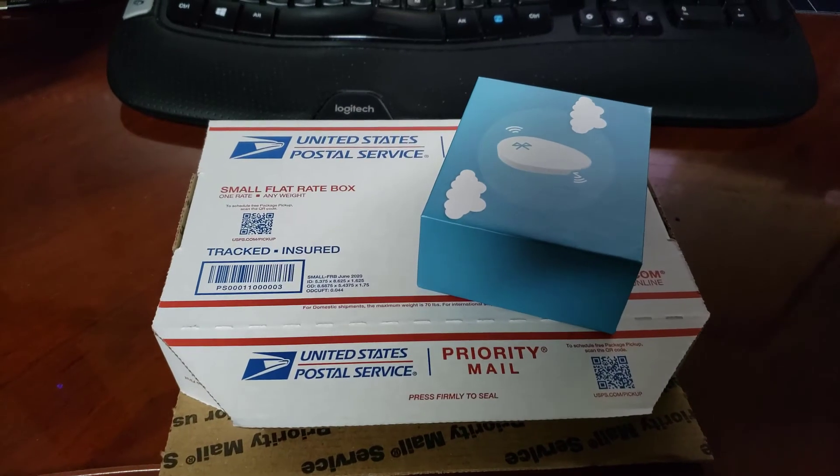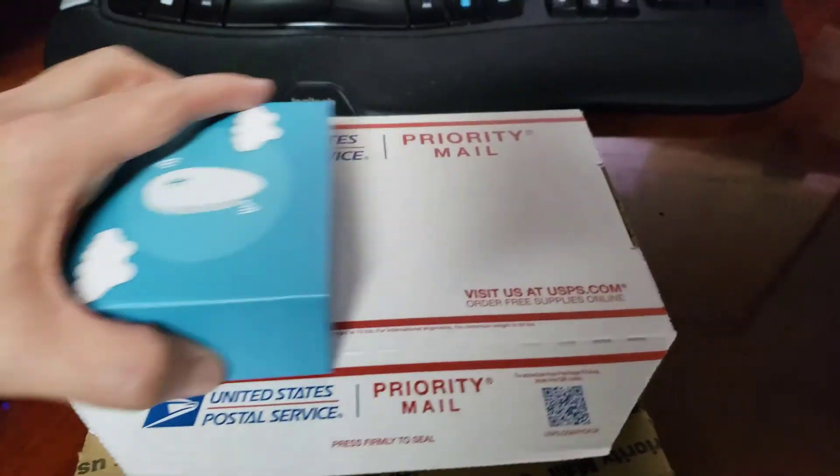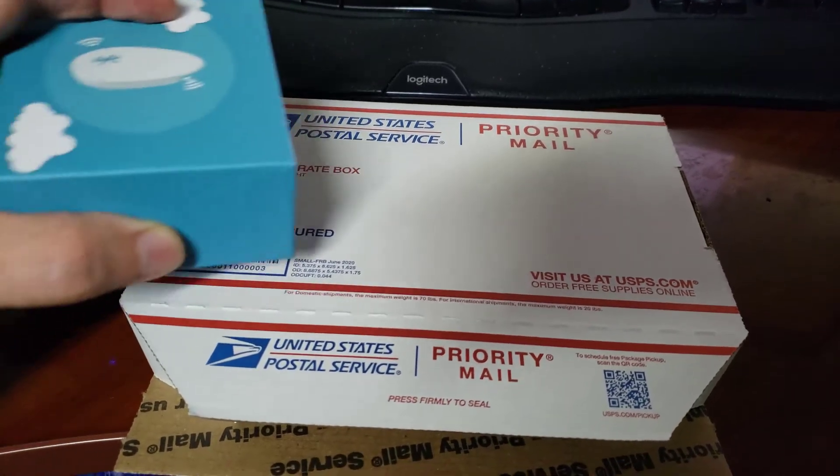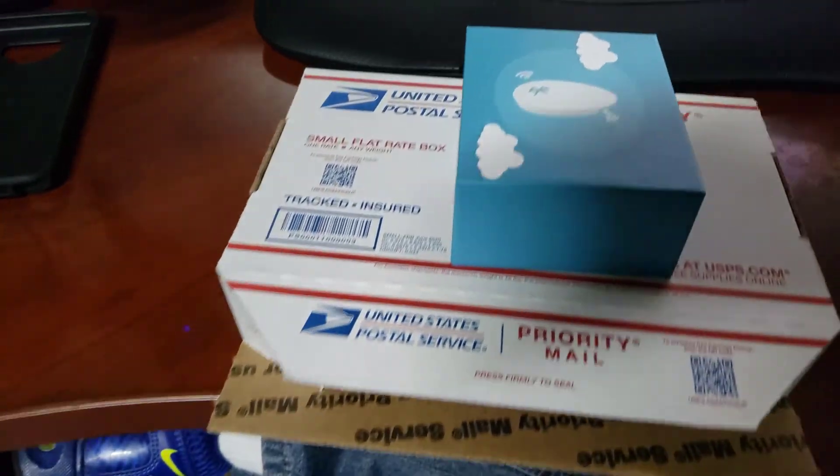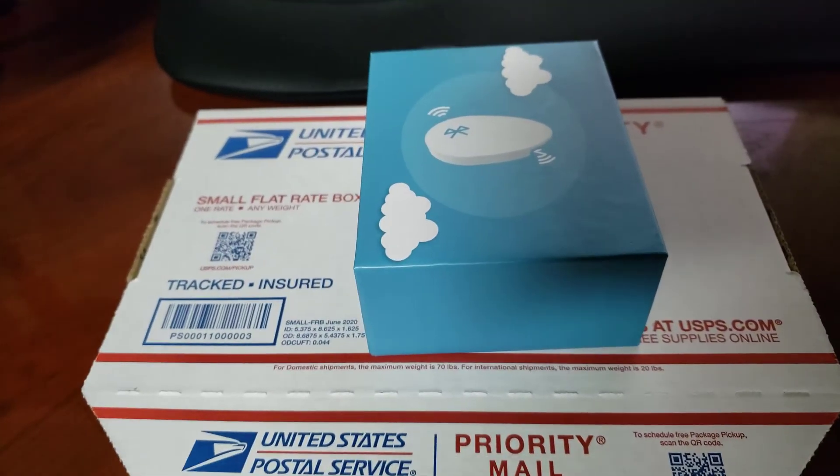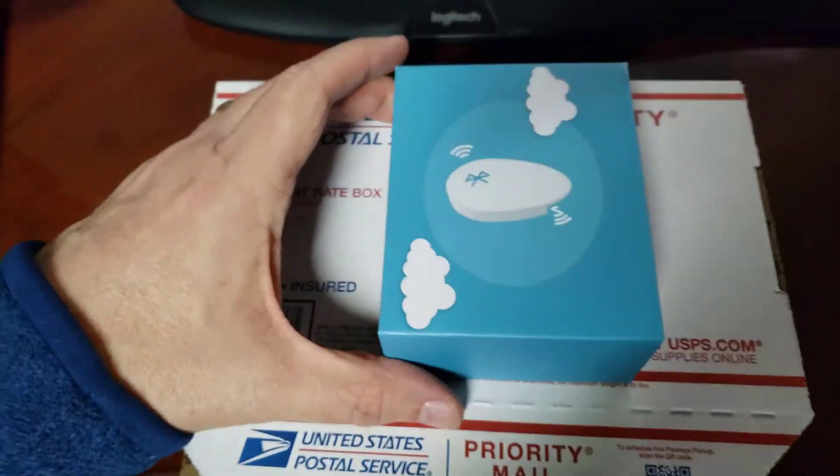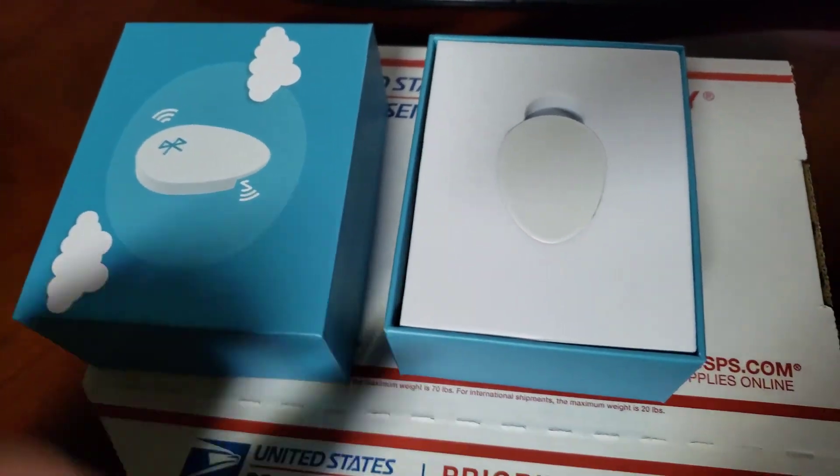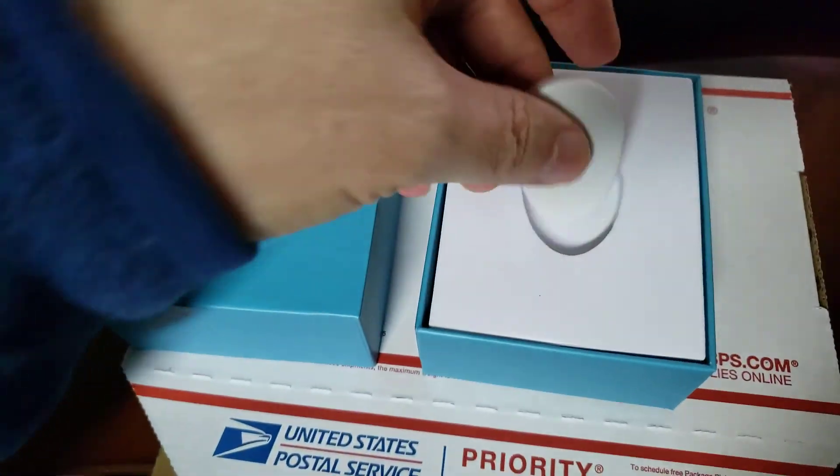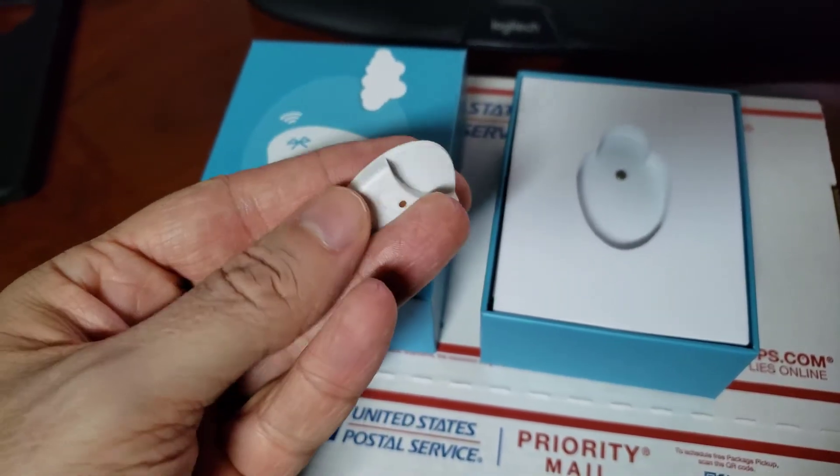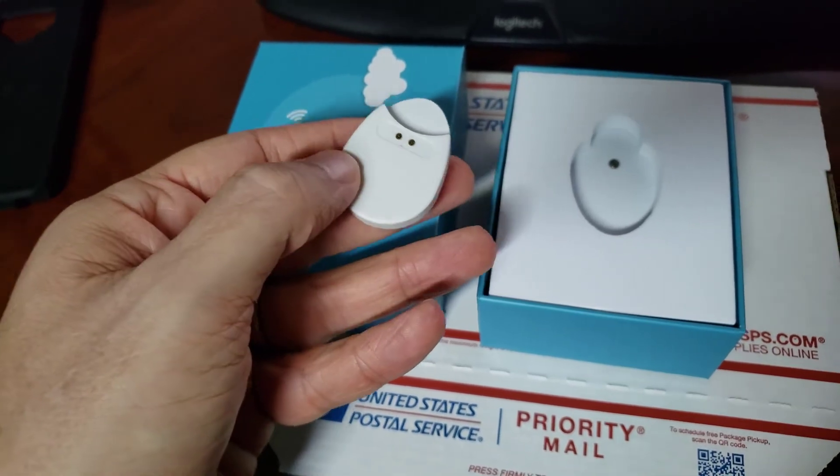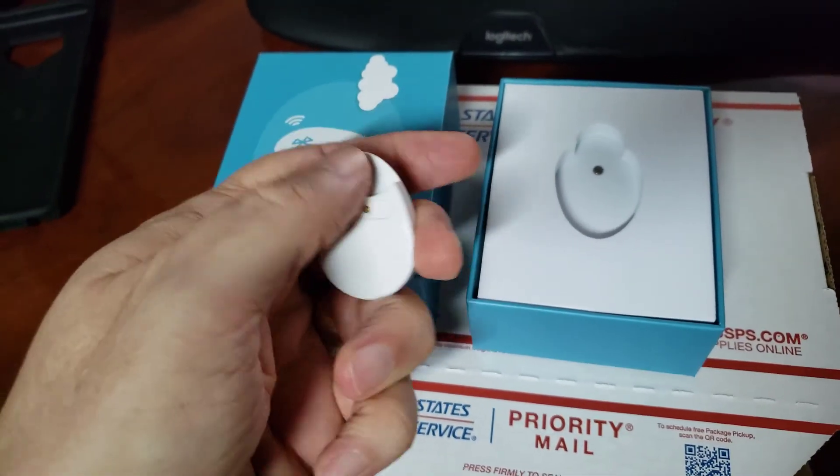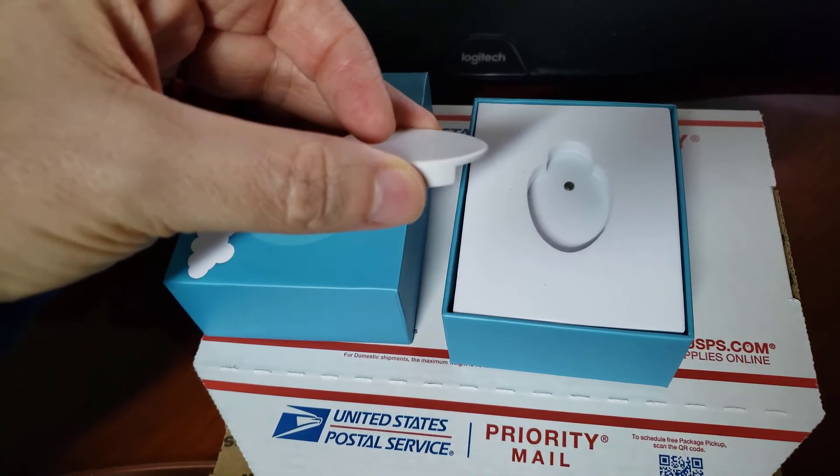Here we are. This is the United States Postal Service two-day flat rate box. This is how it's shipped everywhere in the United States, so everybody will get their bubble device in this package within two days. Inside will be the bubble box, and inside your bubble box you'll have the bubble device. This is the sensor that you will install and overlay over the top of your Libre sensor. You simply apply an adhesive sticky on the back and apply it over the top of the sensor on your skin.